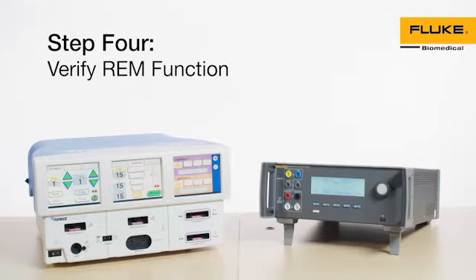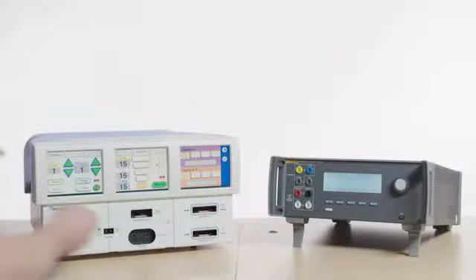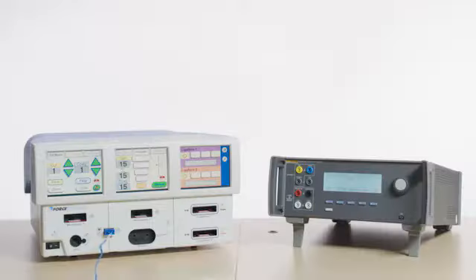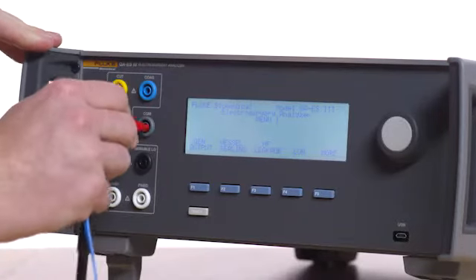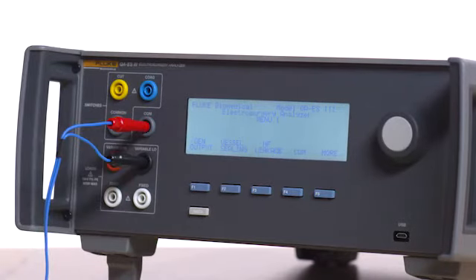Step 4: Verify REM Function. To verify REM function, connect the ESU CQM safety lead to the REM port on the Force Triad. Connect the black banana of the ESU CQM safety lead to the variable LOW on the QAES3.